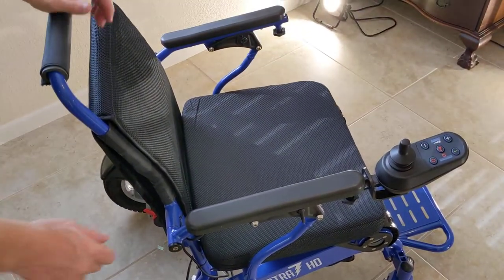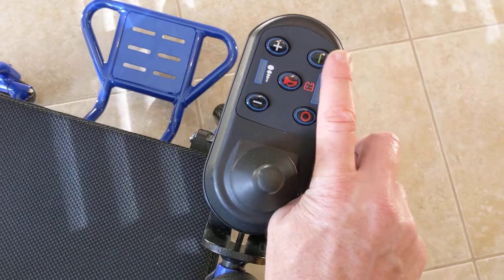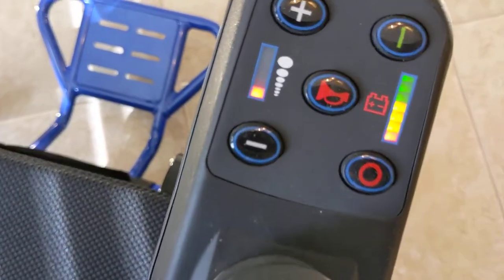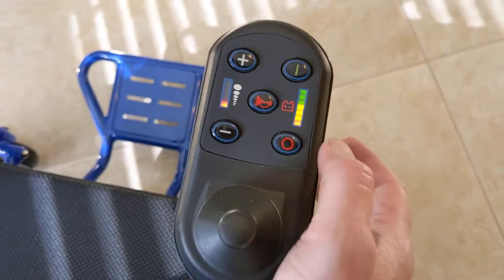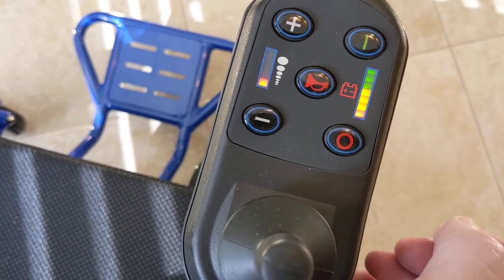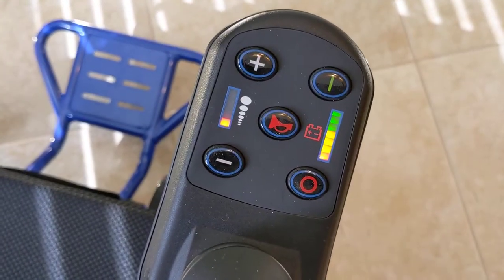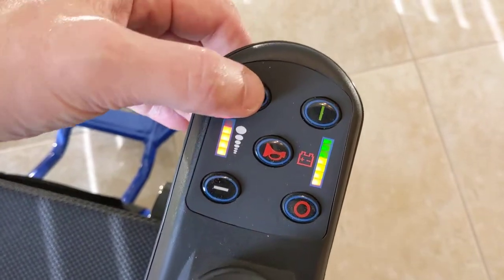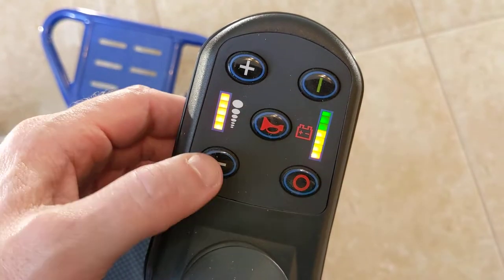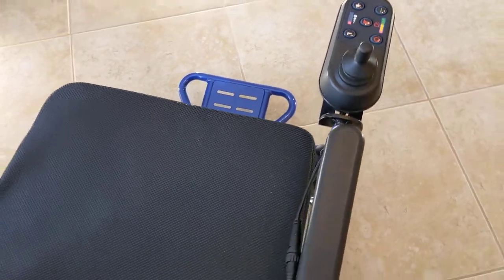The Sensi-touch joystick can be operated with just a single finger. The on button gives an indication the device is on: three green lights means full, two or three orange lights means getting low, and one red light means it's time to charge. You have easy on/off, a horn in the middle, and a speed button. The chair goes up to 4 miles per hour, which is faster than the average walking pace.